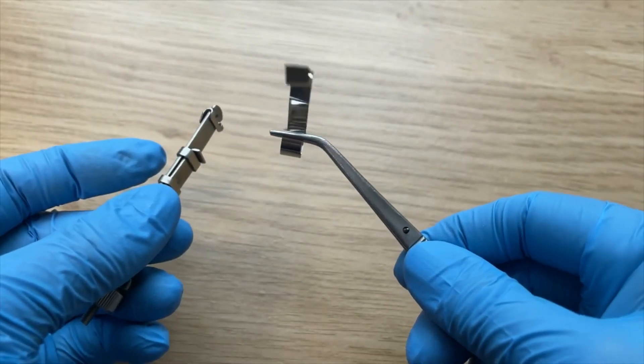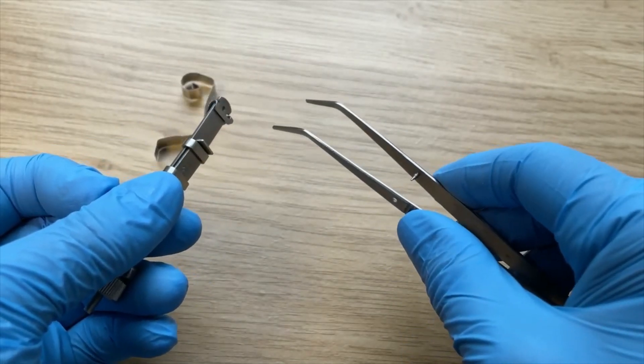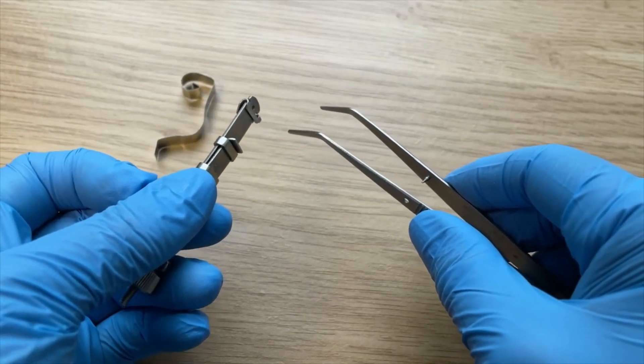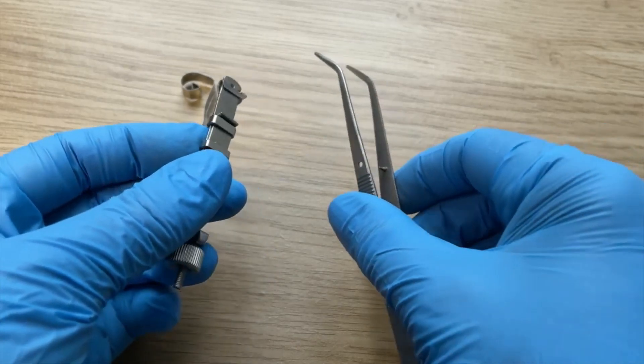There you go. That's the way to remove a used band from the retainer. Remember, don't use your fingers. Thank you so much, bye.